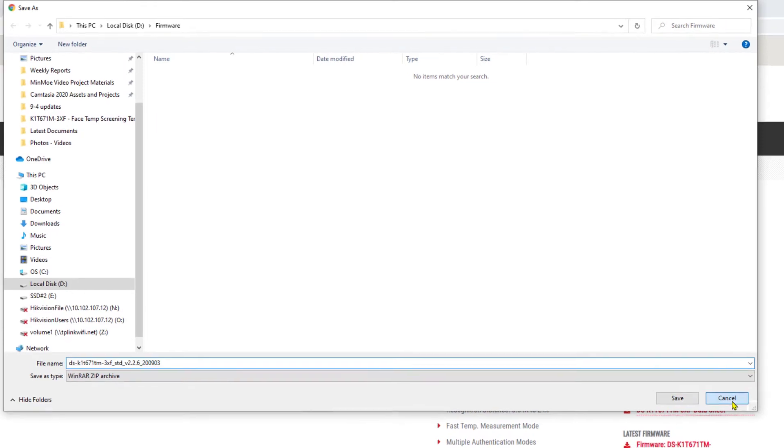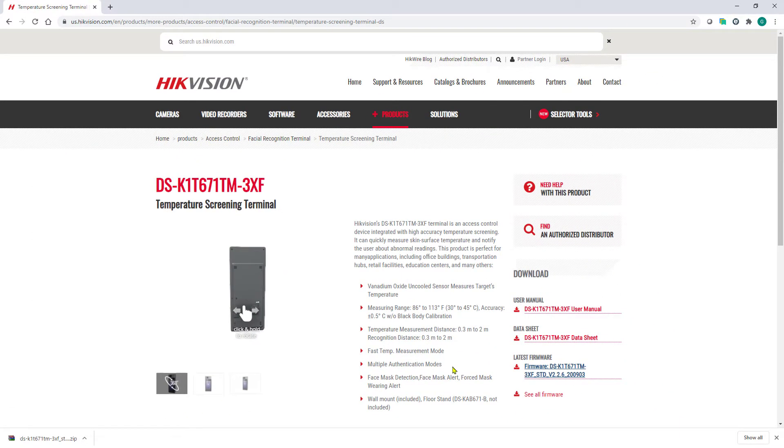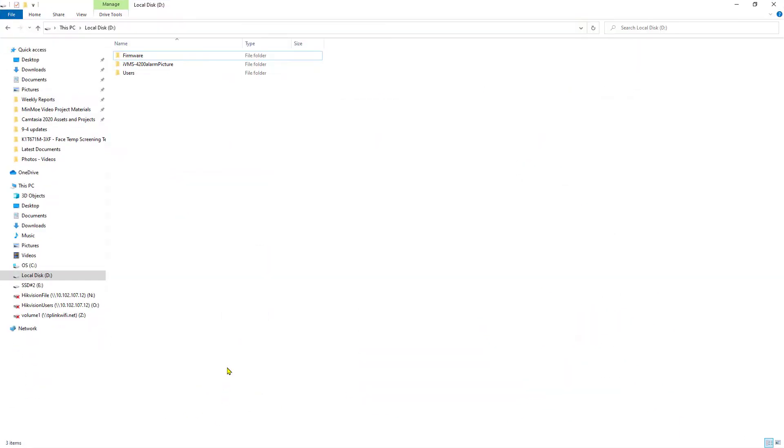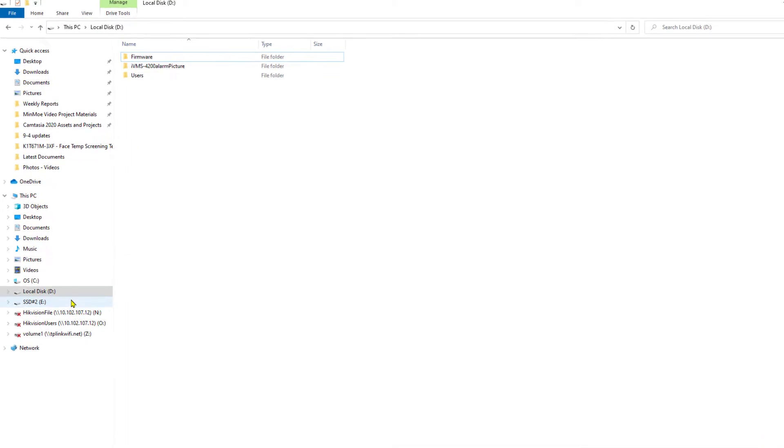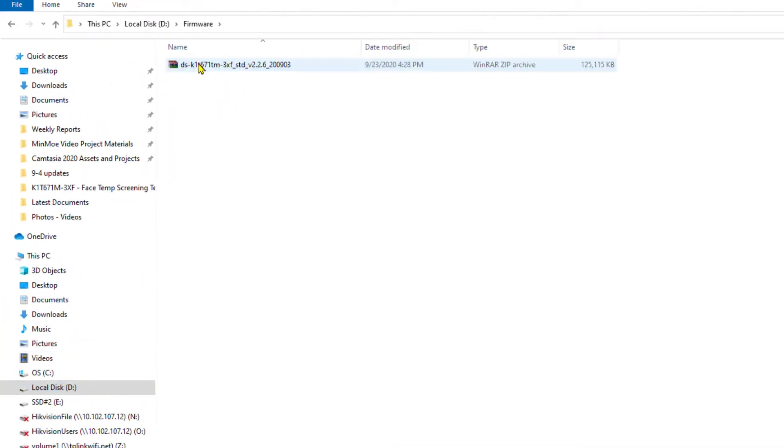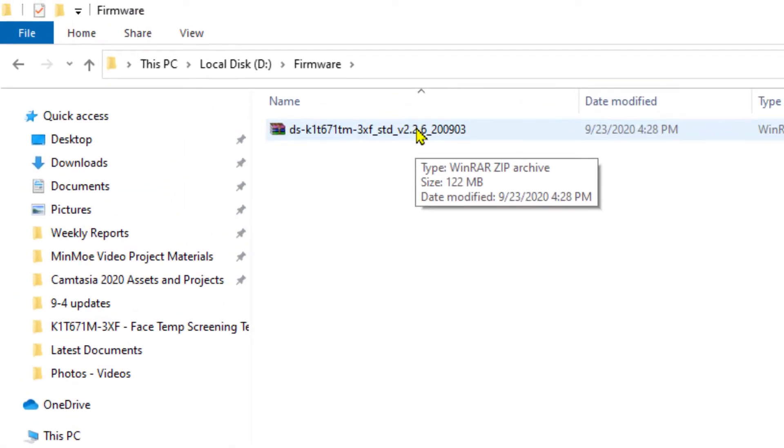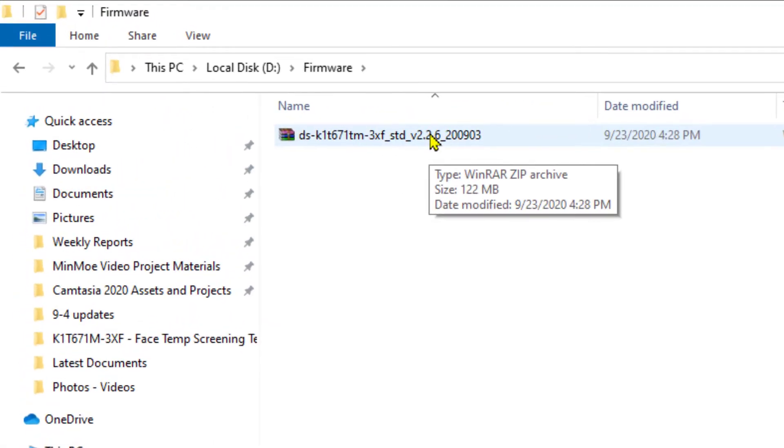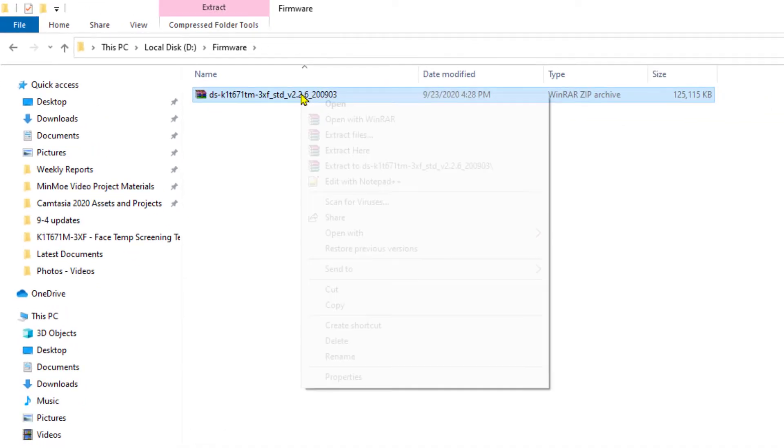Now I'm not going to bore you with the download, I've already done it, so let me go ahead and bring it up and show it to you. I've got it here on my D Drive in a folder called firmware. When I open the folder, I'm going to see a zip file containing three different parts of this firmware upgrade.